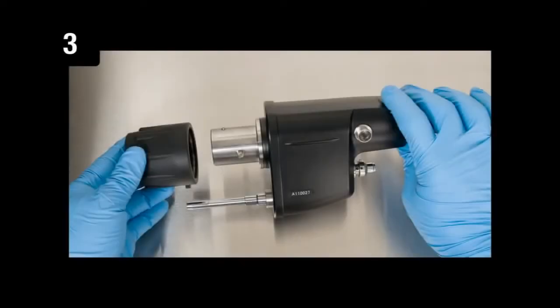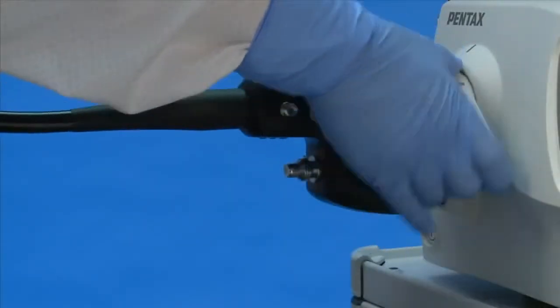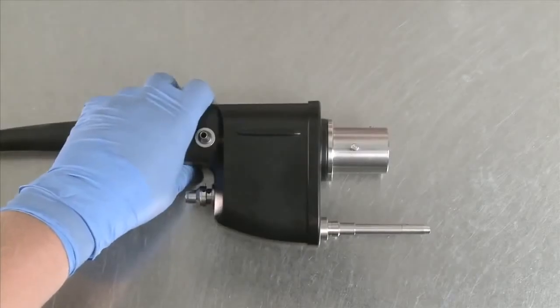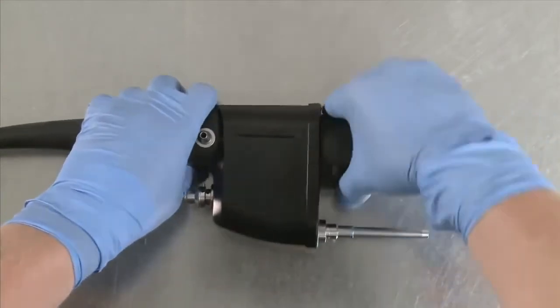Step 3: Attach the soaking cap. Disconnect the suction tube and water bottle tubing from the PVE connector. Remove the endoscope from the processor and attach the appropriate soaking cap. Make sure to align the arrows and lock the cap by quarter turning it clockwise.